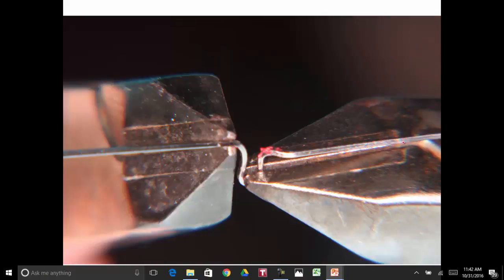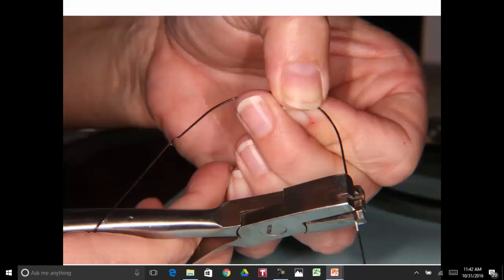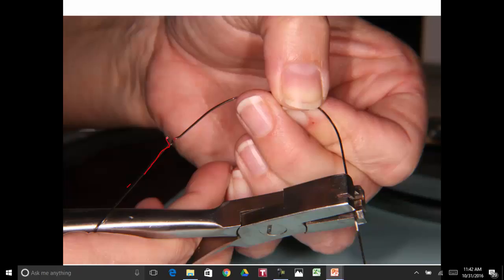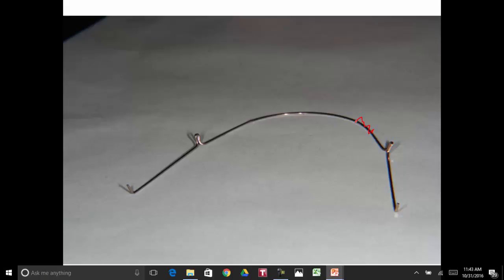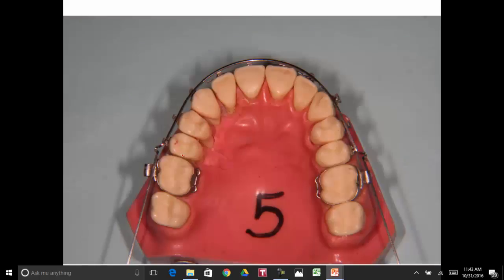Now this is not as simple as it looks to some people. We've torqued it, we've rolled the omega out, and we've taken the torque out of it, and you've got the archwire now that has the omega. It'll be set out to the side as it comes around on the archwire. Now there is no torque in this archwire. If I wanted to put it in there, I would put torque out here and torque here. You can torque these teeth in or out and bring the roots in or out of the crown, and the omegas kind of lean to the side so it doesn't poke the gum on the person, and you can get to it easier. We'll cut this off and slide this in the patient's mouth.